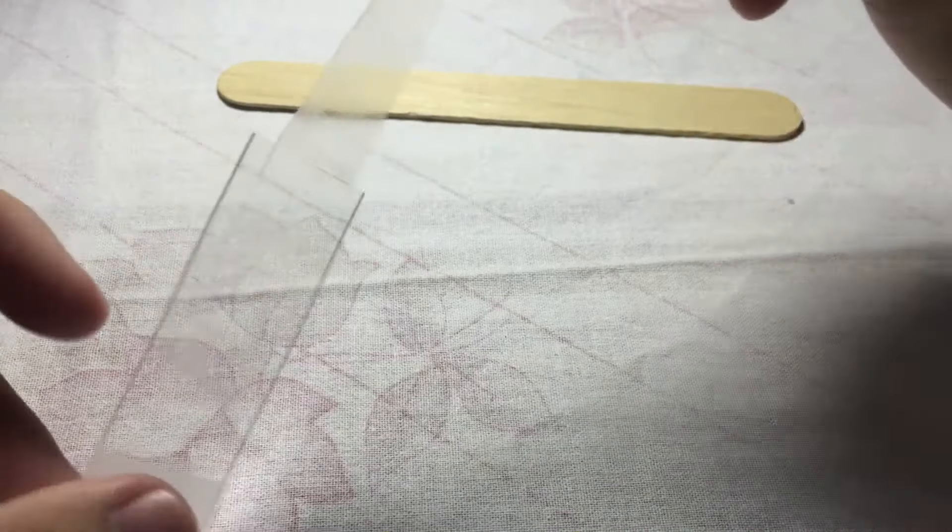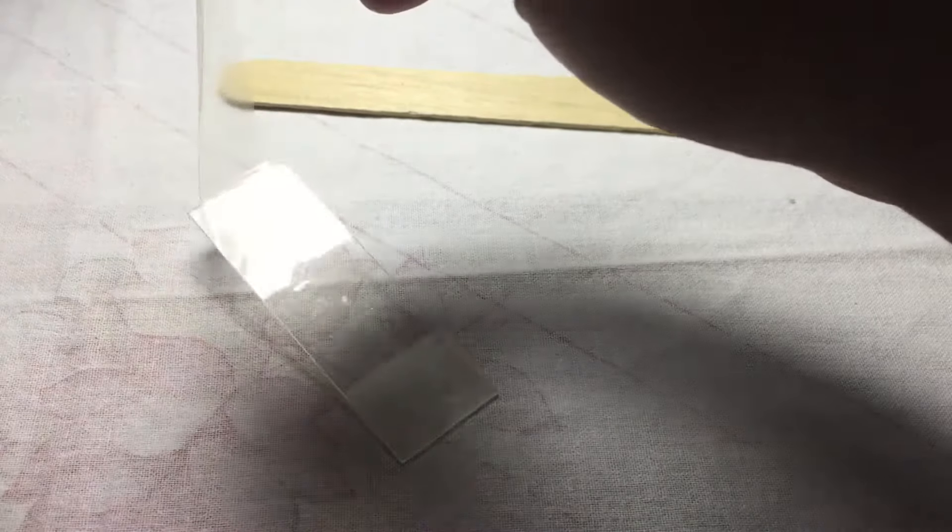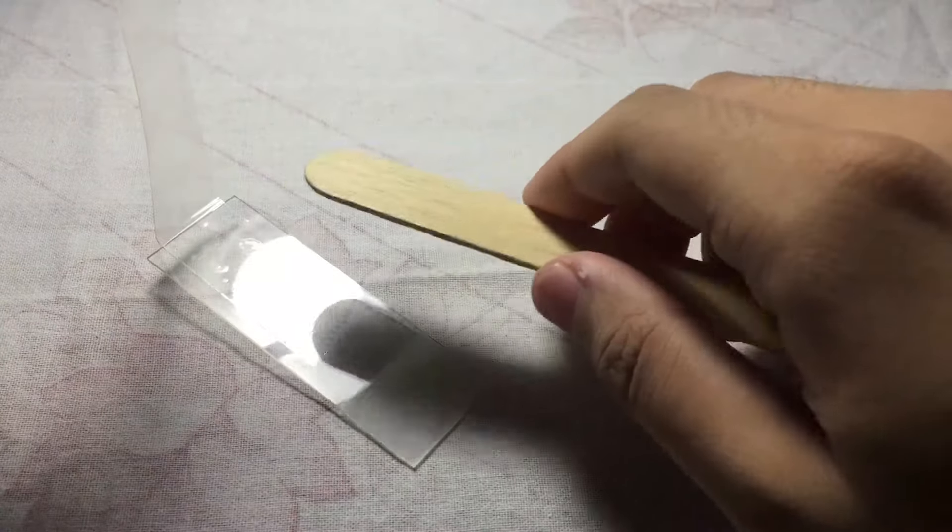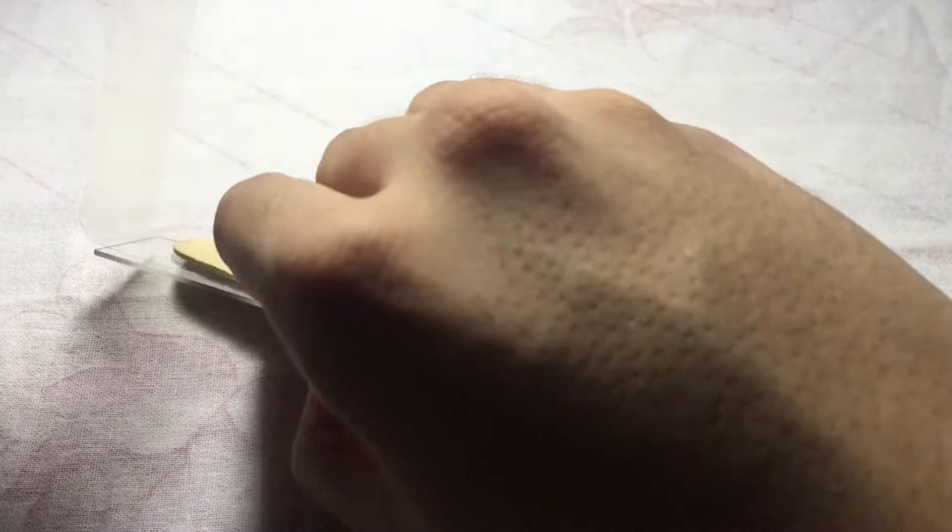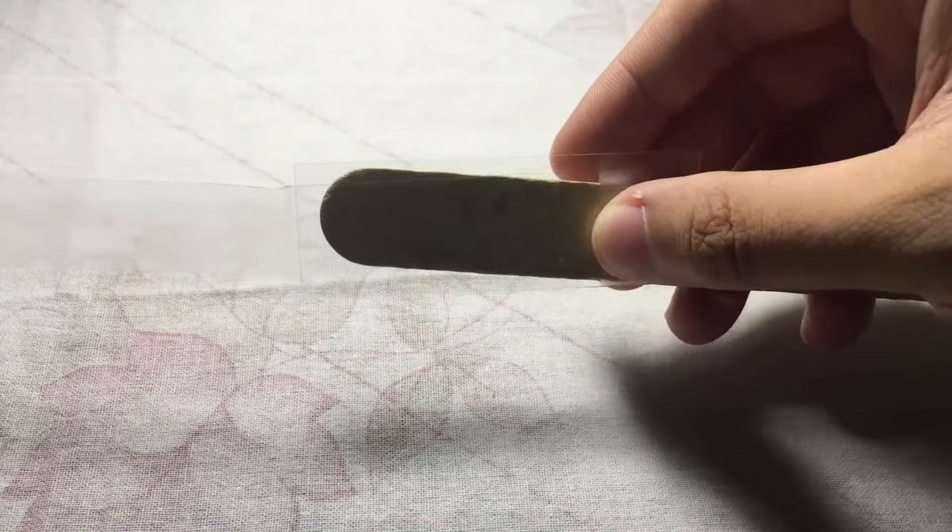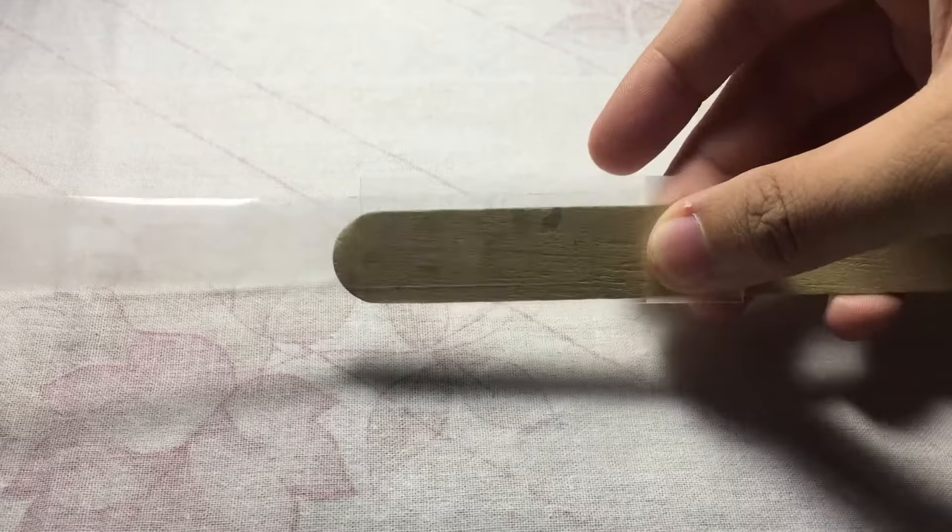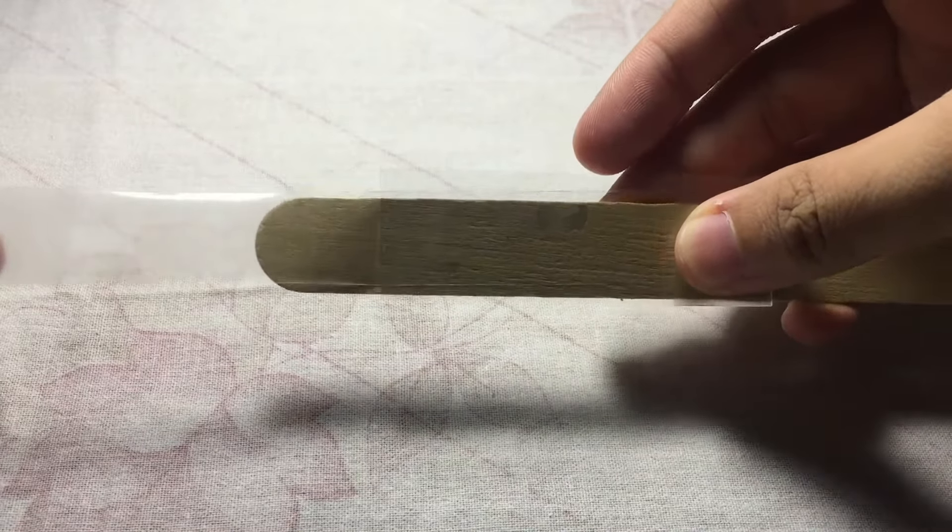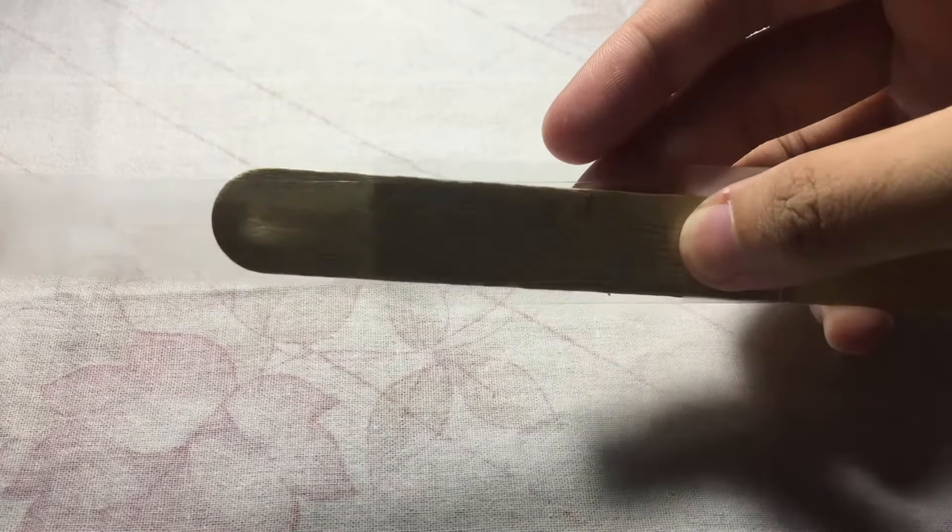Using your tongue depressor, this will now serve as your support. So this is now your preparation - you adjust your tongue depressor to the front.